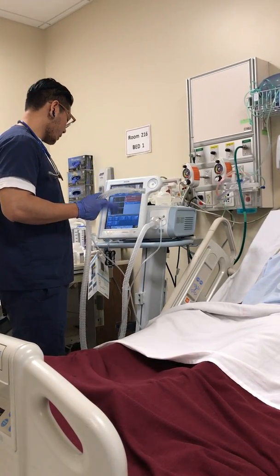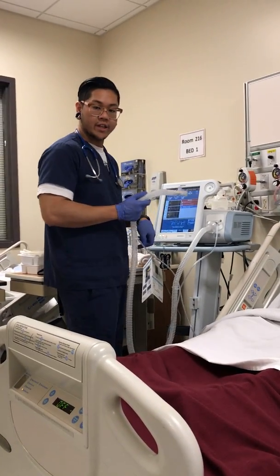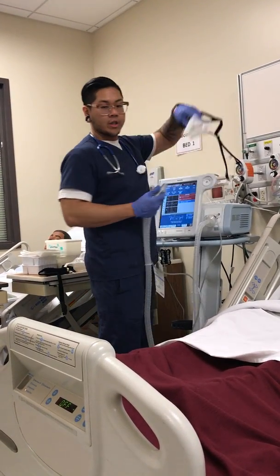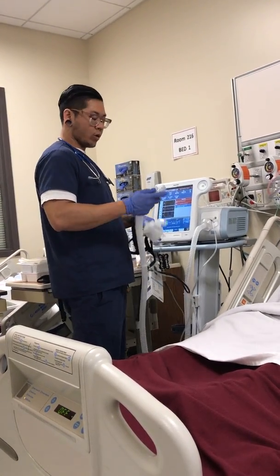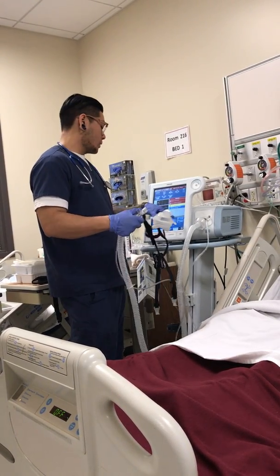silence. Okay. Go to menu. You're going to check the mask and the port with that setting. And then on the Respironics mask, it's going to have a number on it, which is the 1. That's what you're going to pick. So 1's right there. Click accept. And it's asking for your port, which is going to be this one right here. If you have a different one on, just push other.